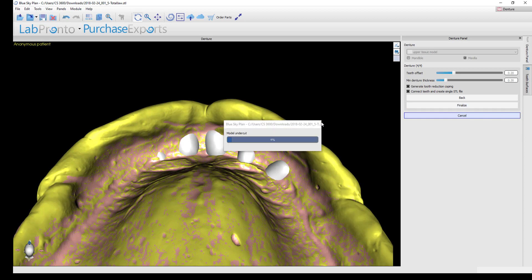I'm checking both options on for demonstration purposes so you can see the files generated. I'll click Finalize now and the software will begin doing all the tooth trimming and creating the sockets in the denture base. This step can take a minute or two, so don't be in a hurry — wait until all processing is done and you'll see the final files that result.